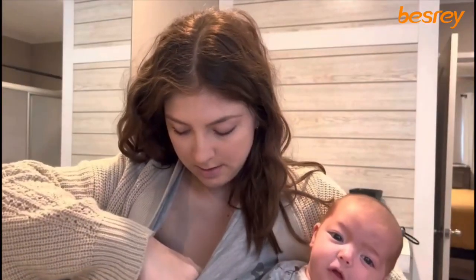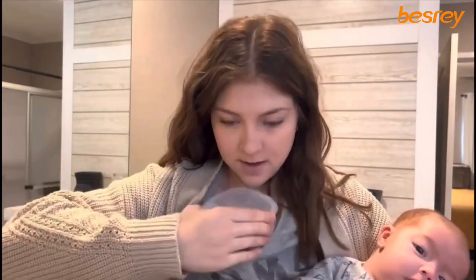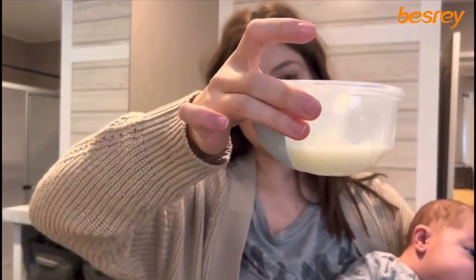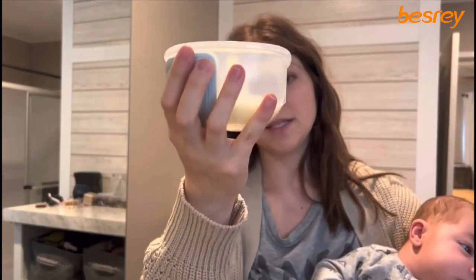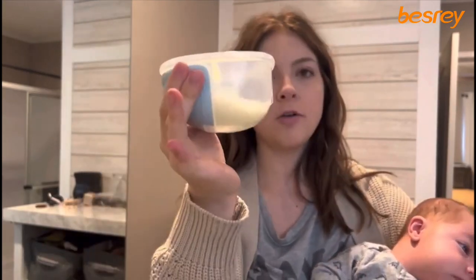I'm just gonna stop pumping now since I have him. This was about 10 minutes on this side — I've already nursed and I exclusively breastfeed other than pumping for extra milk or to get this side equivalent to the other side. It was about 10, 11, 12 minutes on my slacker boob side.